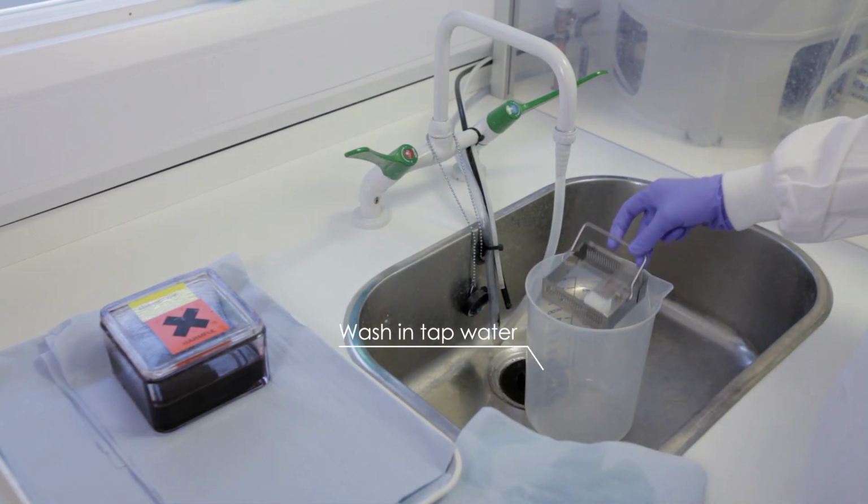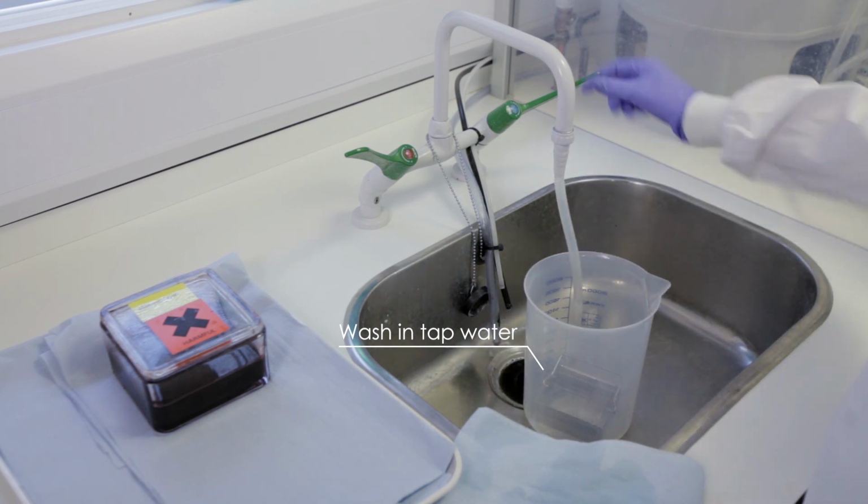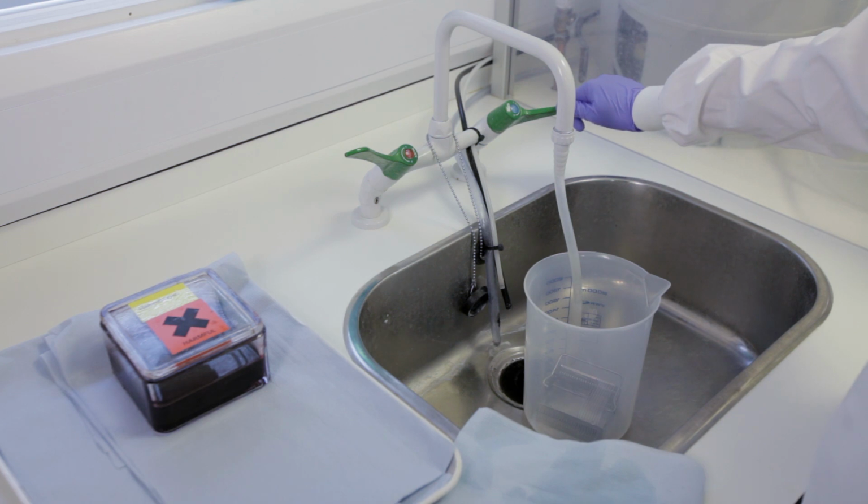In addition to the HRP system, there are a variety of different detection systems and counterstains that can be included in your IHC experiment.